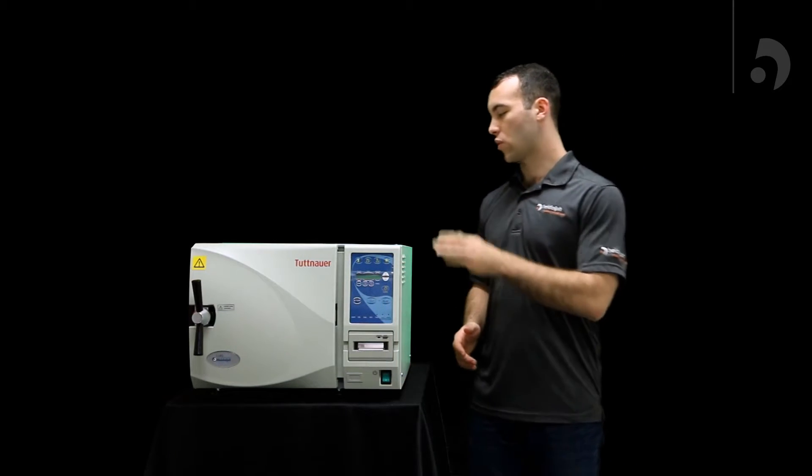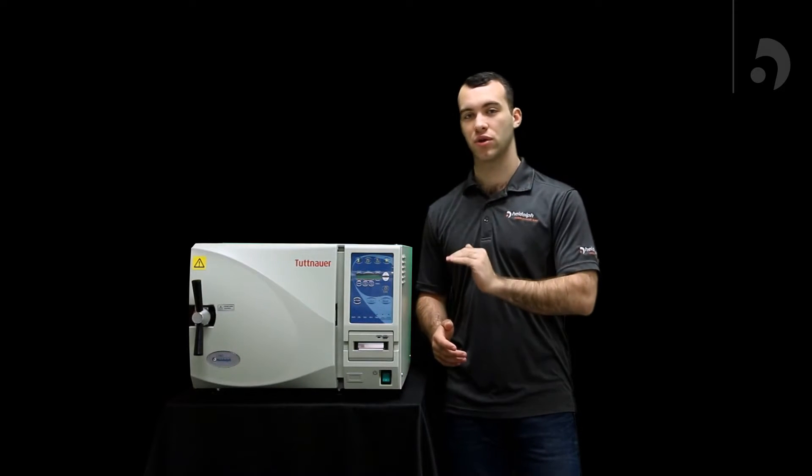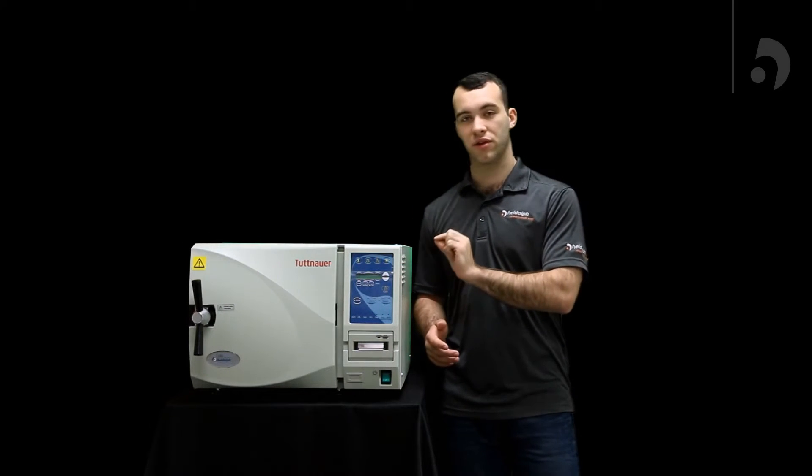Secondly, when it comes to water reservoir, make sure the water level is not too high, not too low. It should be right underneath your safety valve.